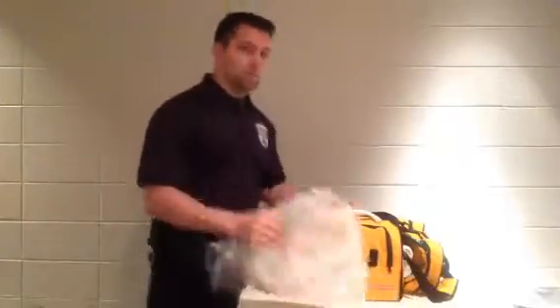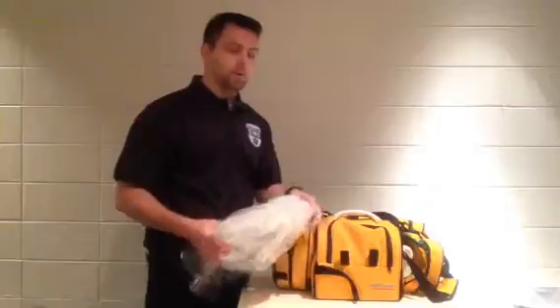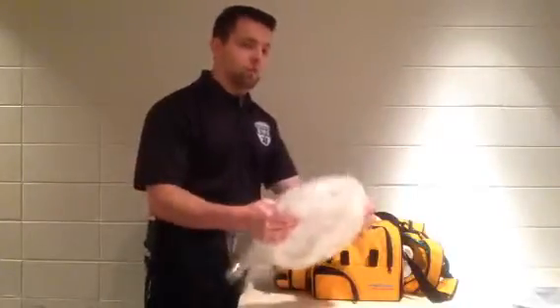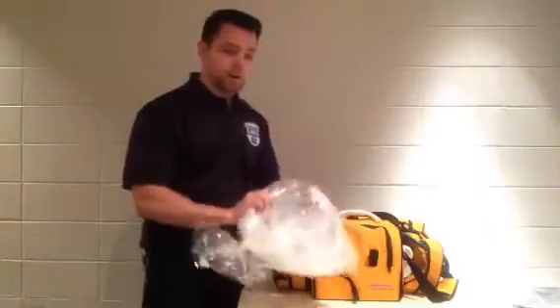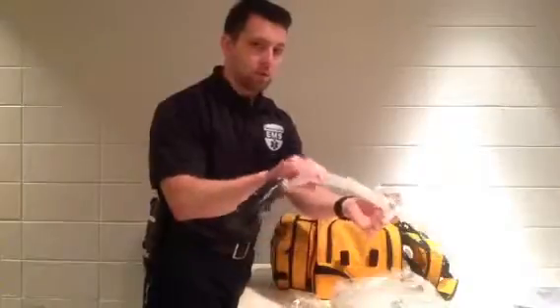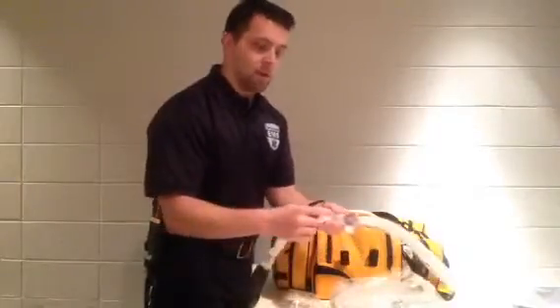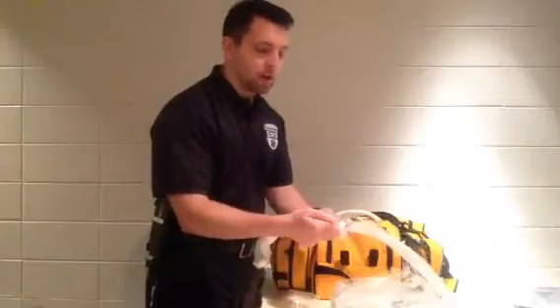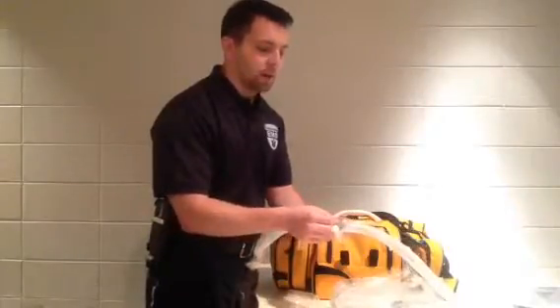First let's review the tubing really quick. We have the tubing that works for both of our ventilators, and if you look at the other video, that's going to go over the setup of the actual tubing itself. So the setup is going to be identical. I've got one here that's in the package and one right here that's out of the package hooked to my artificial lung, and in that video we already went over how we hook up to the proximal line and to the exhalation port.